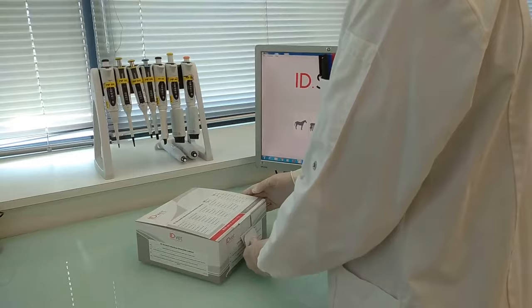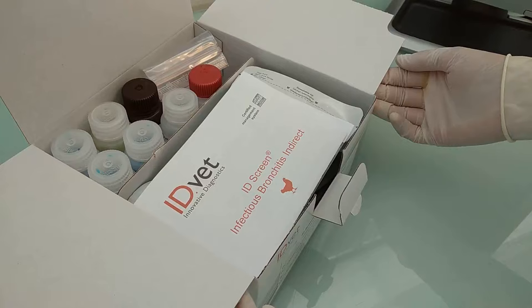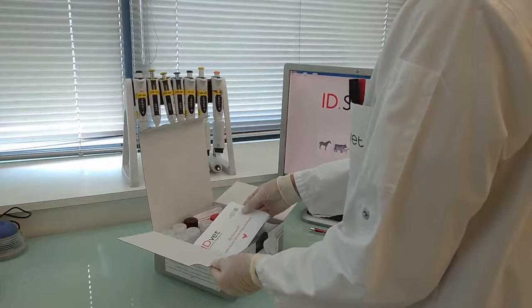An ELISA kit is composed of the following elements: the kit documents, instructions for use, and quality control data sheet.